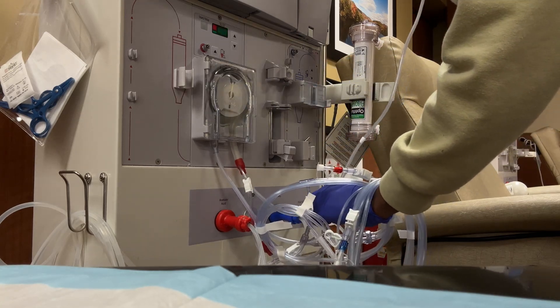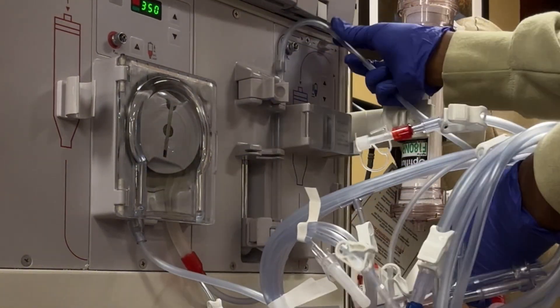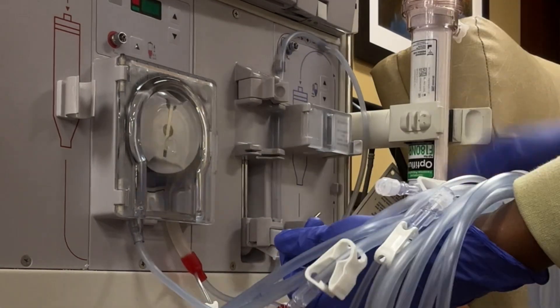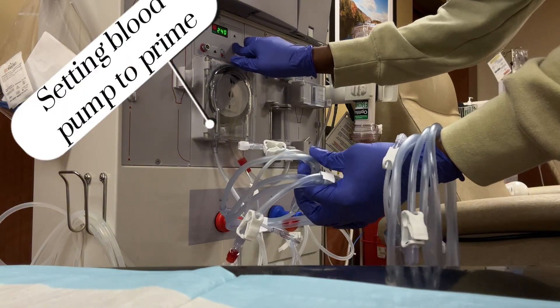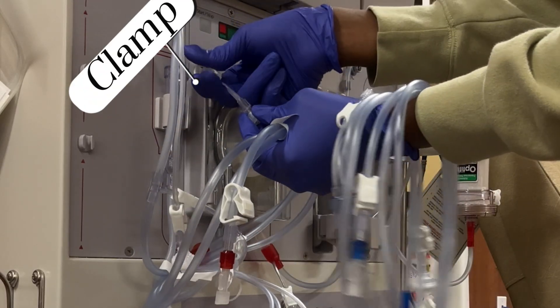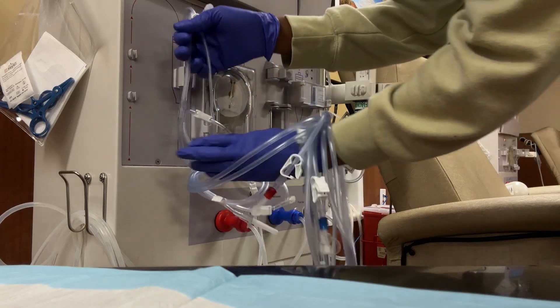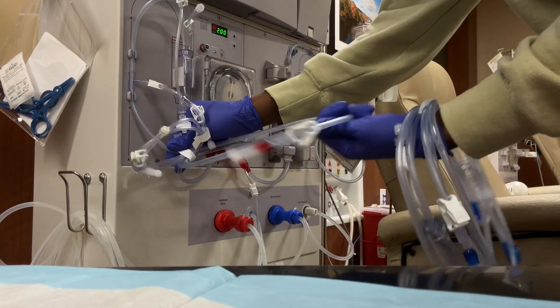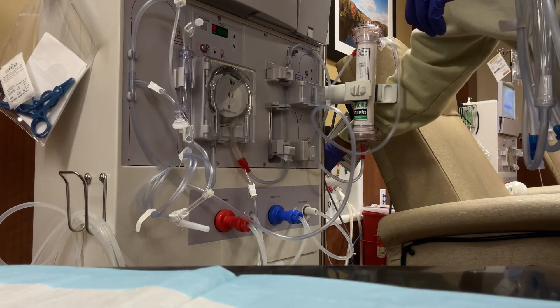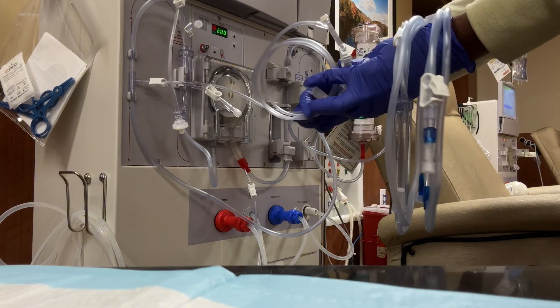This part is important. This is when I figured it out one day, just literally staring at the machine, following the red lines. Clamp. Clamp. Clamp. Trash. I throw away and clamp as I go. A lot of things are as I go because when the patient comes in, I don't want to have to clean an extra mess.